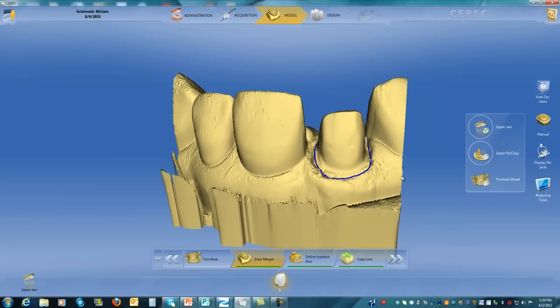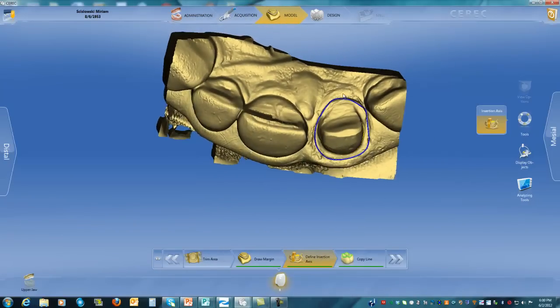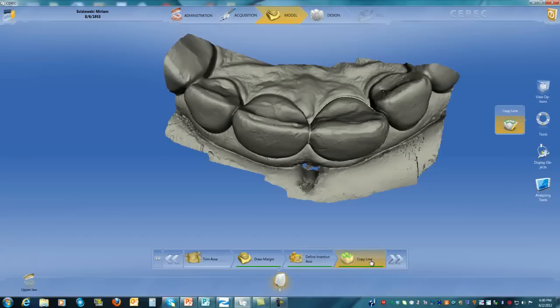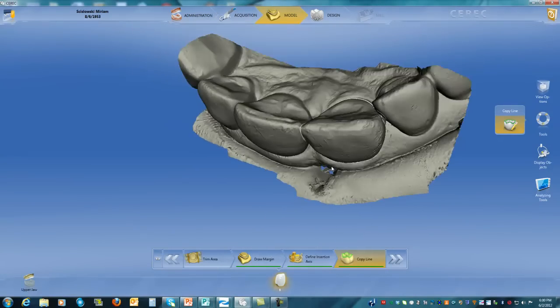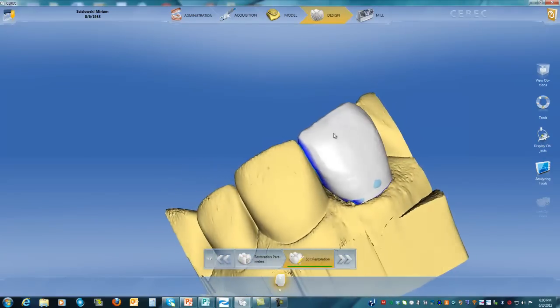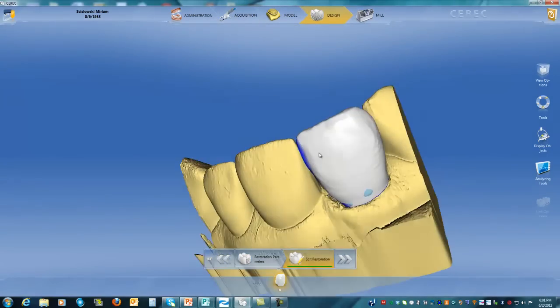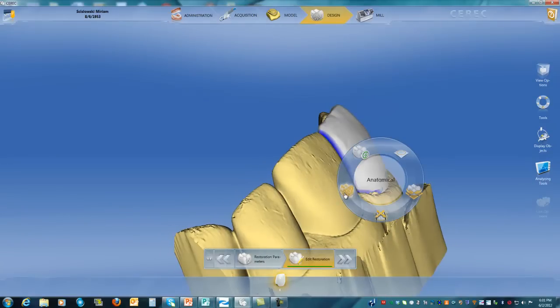When I draw the margins, especially in the front teeth, I use high intensity mode, define the insertion axis, and when we're done we click OK and copy the line. With the insertion axis set and all images ready, you don't even need to adjust your copy line — it looks beautiful. We got a nice proposal and I don't see major problems. There are a few little adjustments to correct.